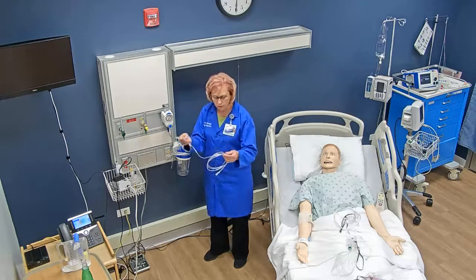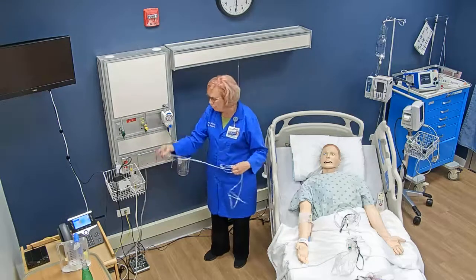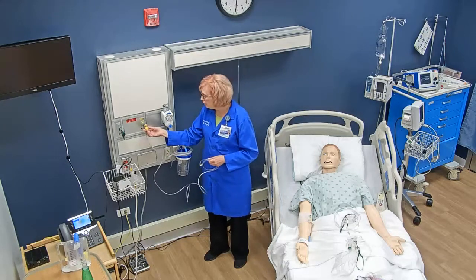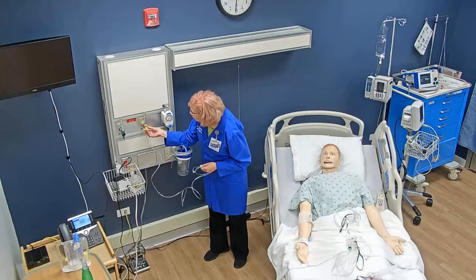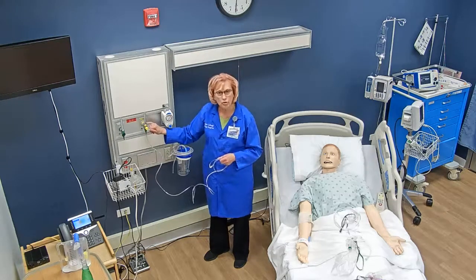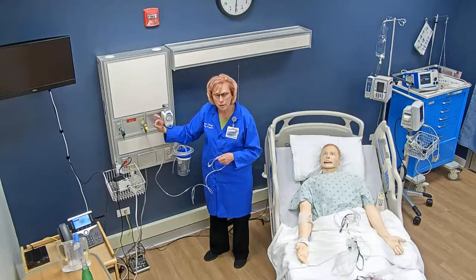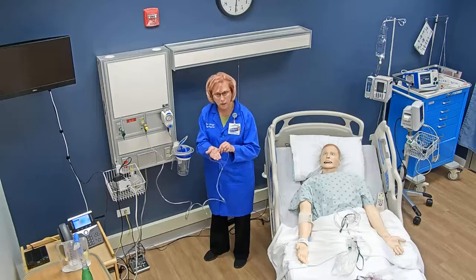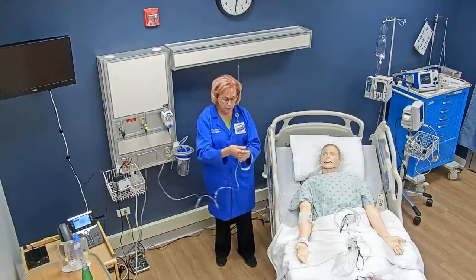Here's my nasal cannula. I connect my tubing directly to that adapter, and then I turn on the flow meter. If I want to start at three liters per minute, there's a silver ball — I want to make sure the silver ball is right at the line for three, right in the middle. Then I check to see that the oxygen is flowing; I can feel it on my hand.